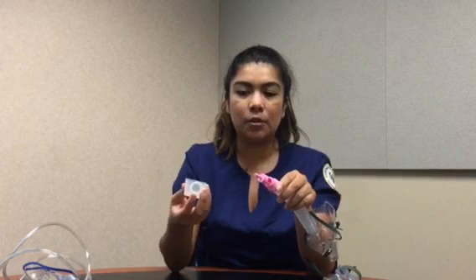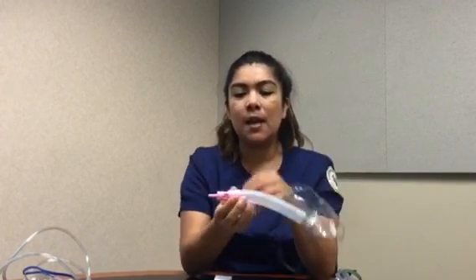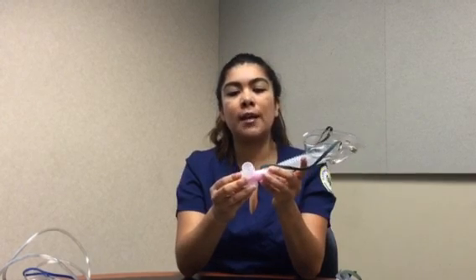And then it has a little cap right here, which basically covers the little port, because as you can tell, the ports have little holes, entranceways in here. If a patient is lying down on the bed using one of these Venturi masks and the blankets go over it, it's going to be blocking, so they're not going to receive the proper FiO2. If you use this little cap, you block that, and in case the blankets go over it, it's not blocking the ports, and they're still receiving the proper FiO2 that they're supposed to be receiving.